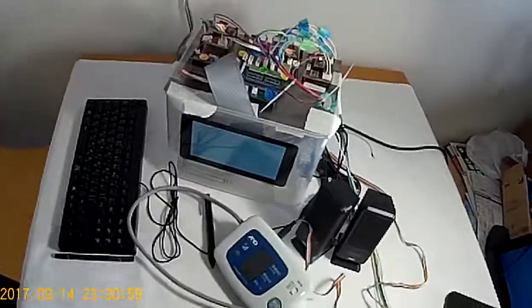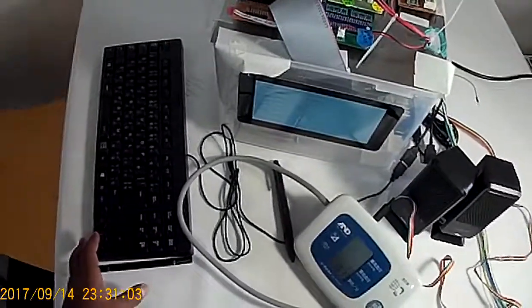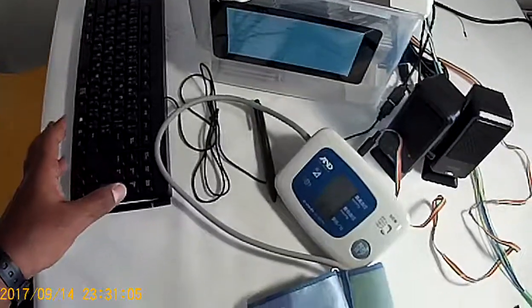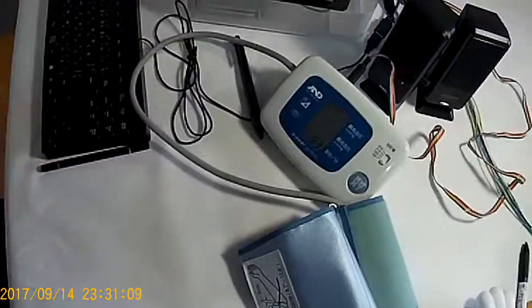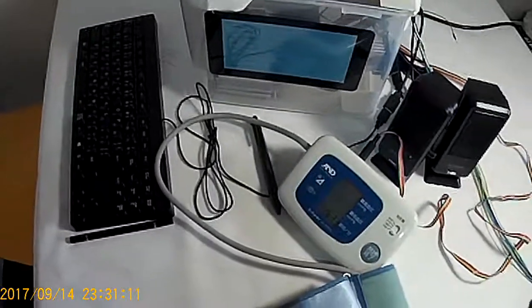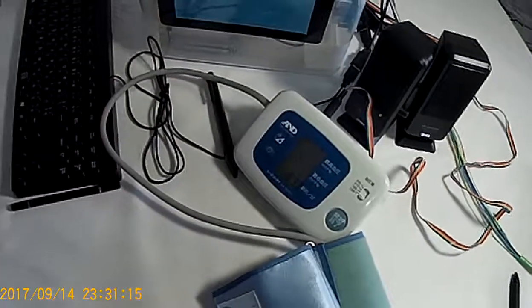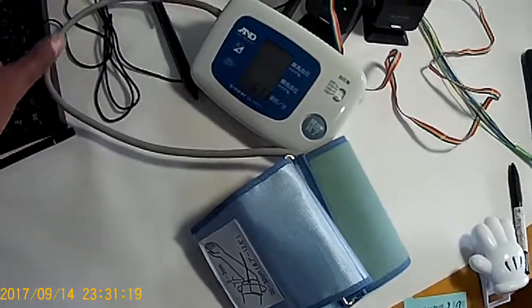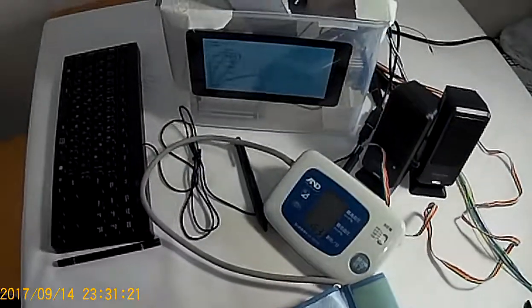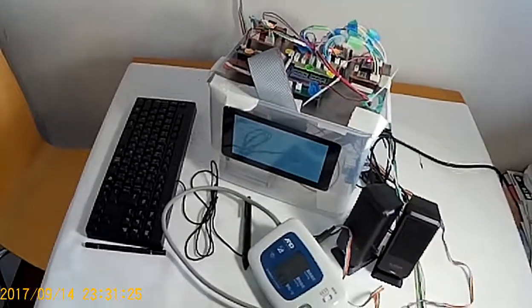If you wonder what the keyboard is going to do or how long it is going to stay here, it's just a prototype, just to start the command here. But in the long run, once the prototype is fully developed, the application will run when the system starts, and we don't really need the keyboard, and we don't really need to type anything. So that's how things are going to be directed.